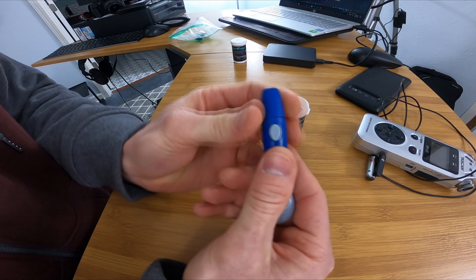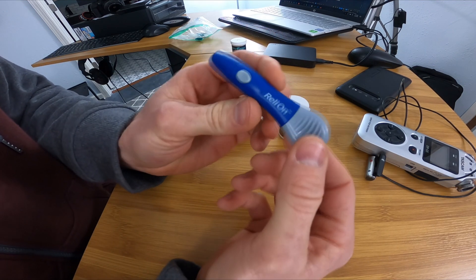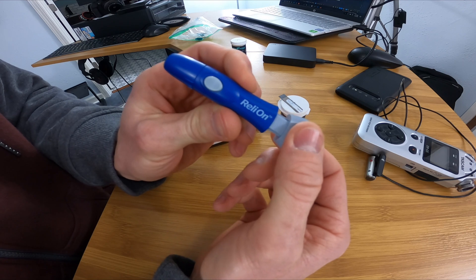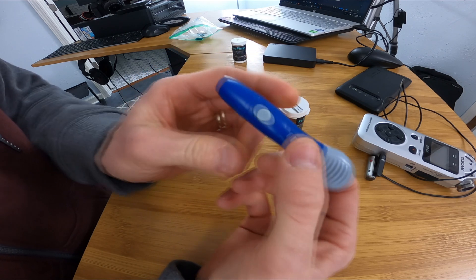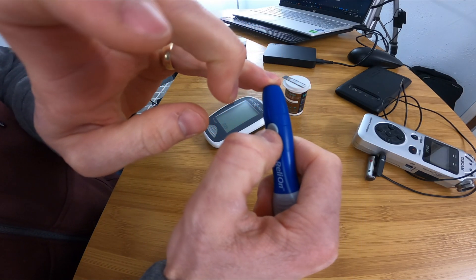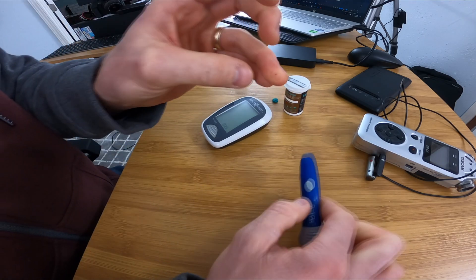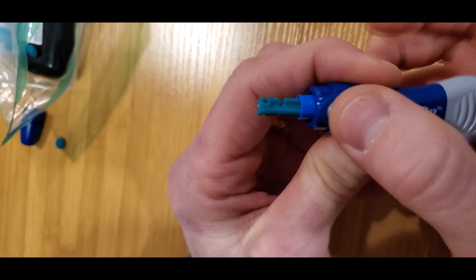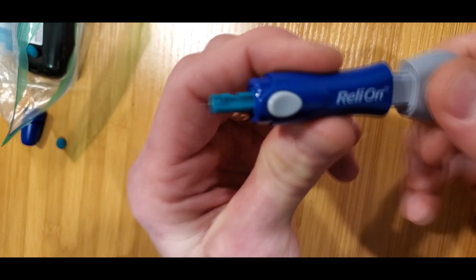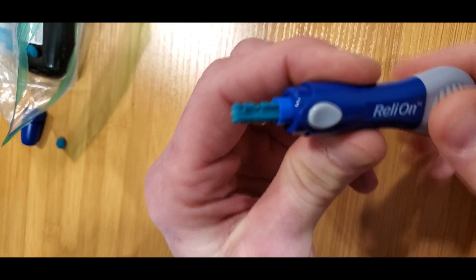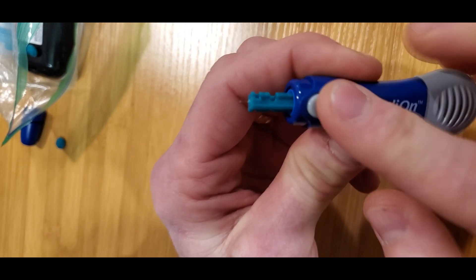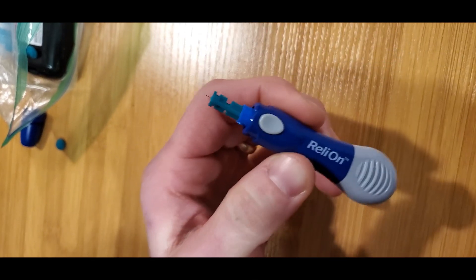Cock the spring back and release it by pushing the button. Since you can't see it once the cap is on, here's what's actually going on inside the lancet. It's just popping up that microneedle.